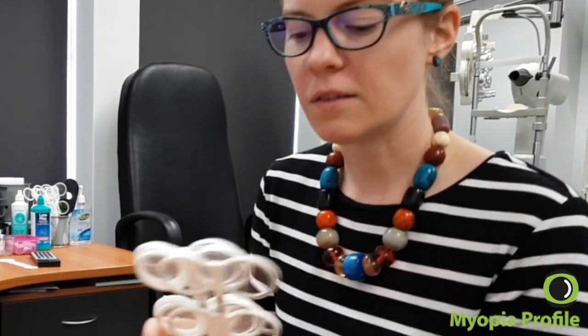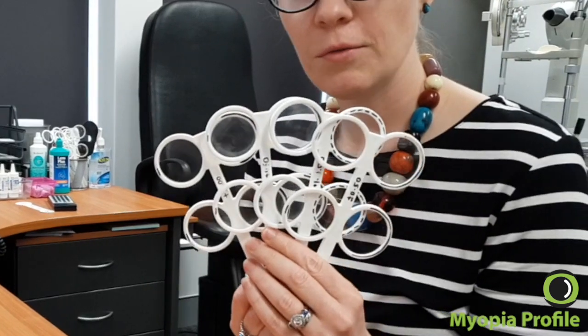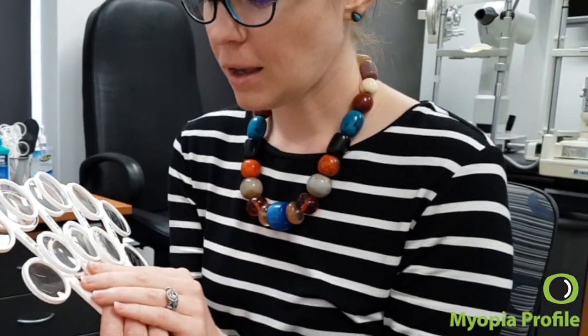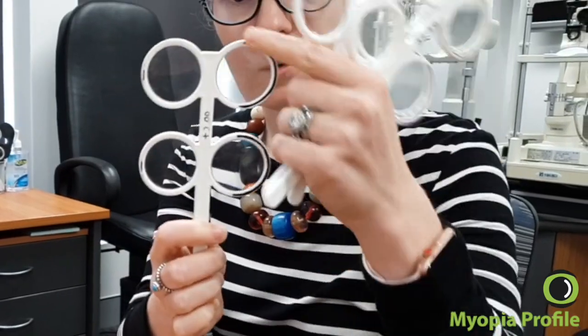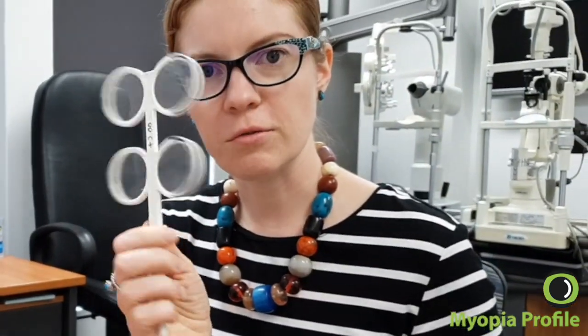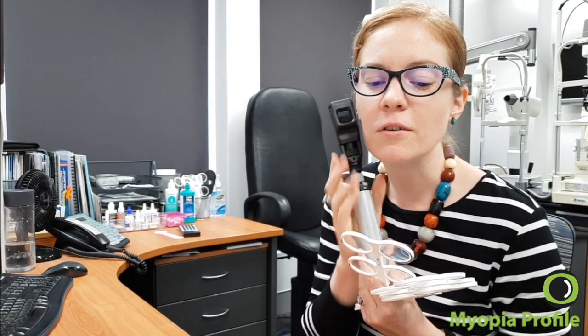The most essential tools to measure accommodative lag are some flippers. Here I've got plus/minus 0.50 out to plus/minus 2.00, and the way I mark them to make them easy to see is I put circles around the plus side and little minuses on the minus side — so easy to flip and see what you're doing. And of course your RET, your most beloved RET. Hopefully you love your RET as much as I do.